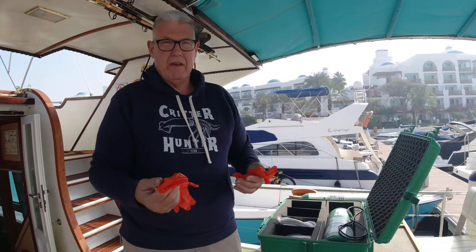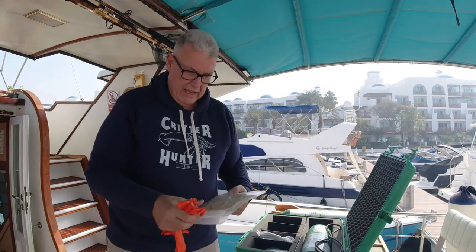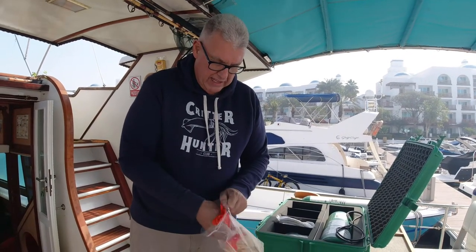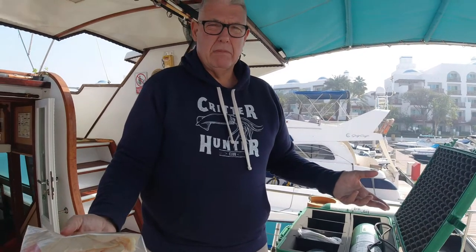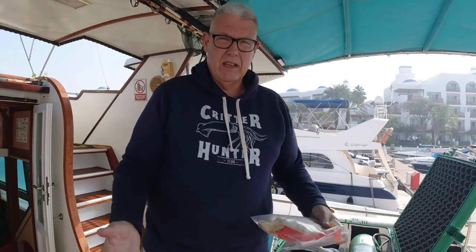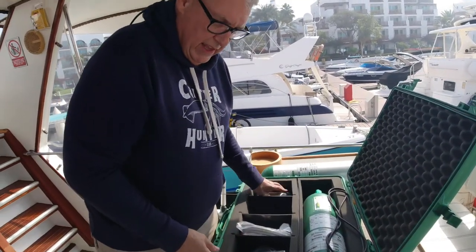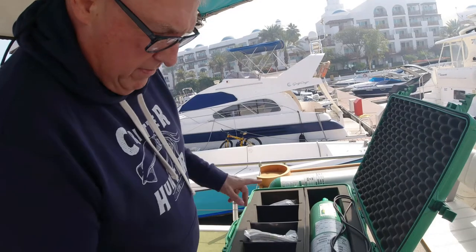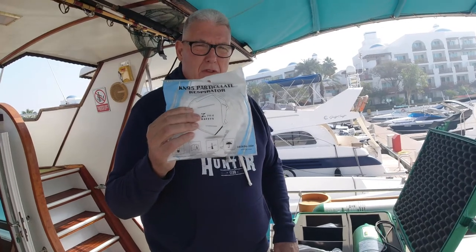They give you one pair of gloves in the kit, which is a bit silly. I've put a load of gloves inside plastic bags — at least five pairs. If you've got a casualty and several people working on them doing CPR, because you get tired very quickly, you need more than one pair. If someone's assembling the kit they need gloves too. Also given COVID-19, it's a good idea to have a pack of medical grade masks.